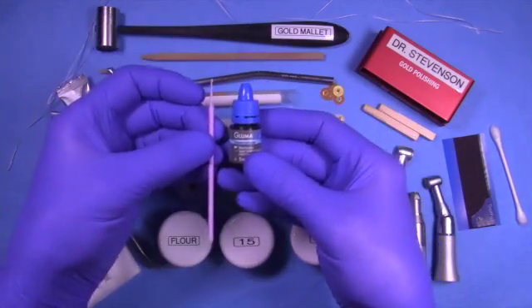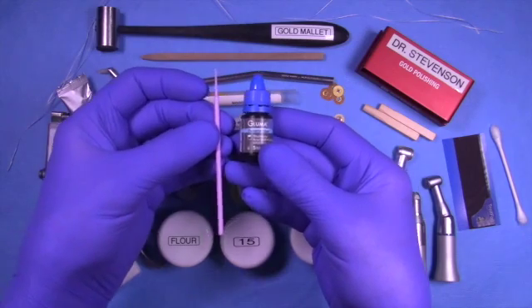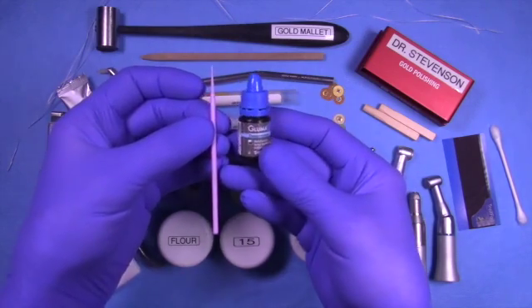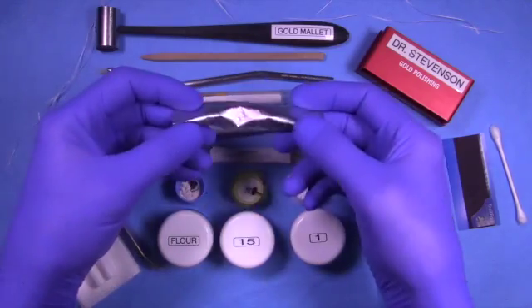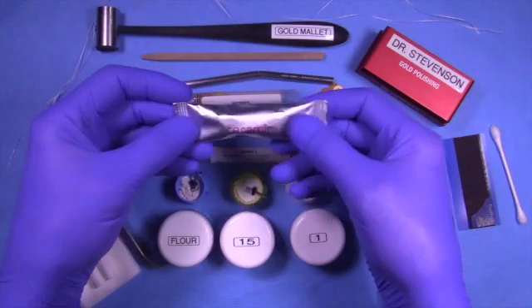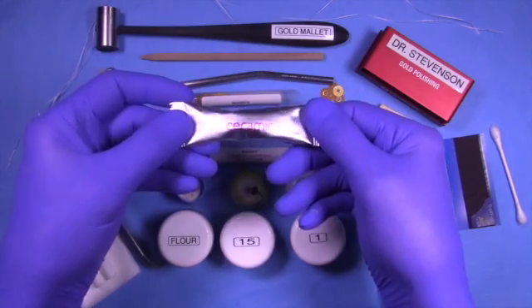First, I absolutely love some kind of desensitizing agent. Here we have Gluma. I like to apply Gluma before I cement to protect the tooth from any sensitivity that may occur from time to time.